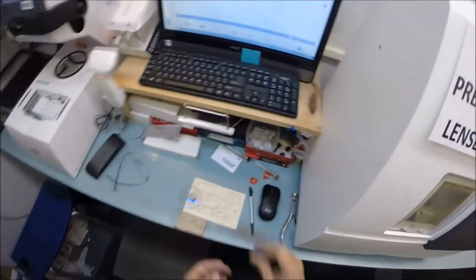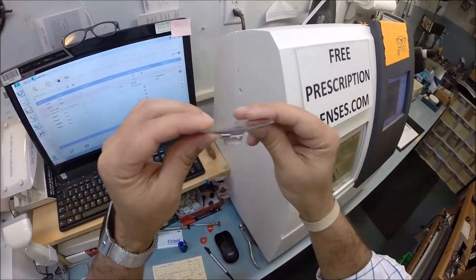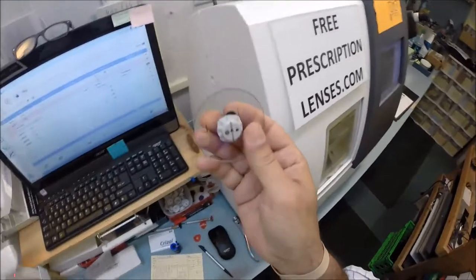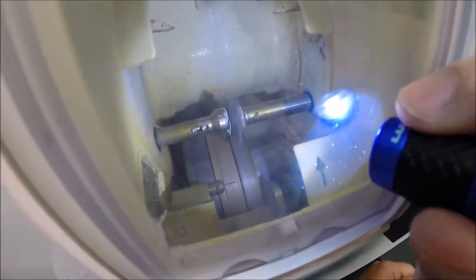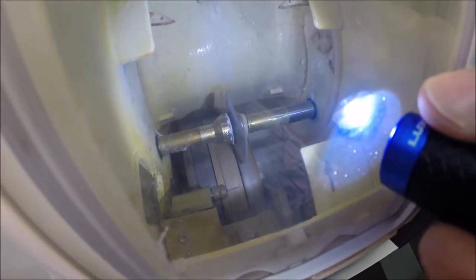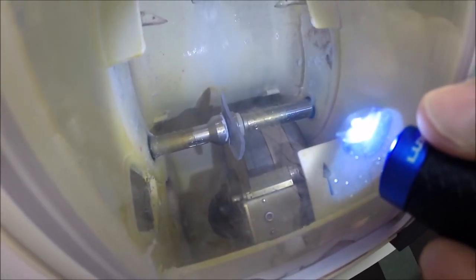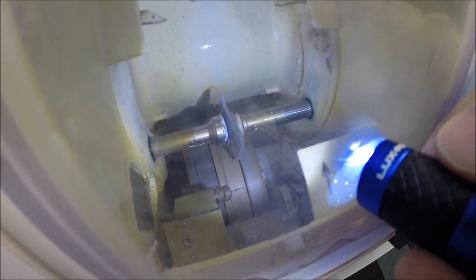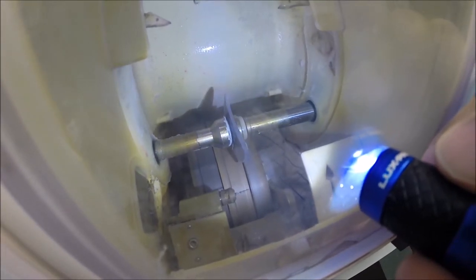My lenses are made out of polycarbonate. Polycarb is 40% thinner and lighter than regular plastic. They are virtually unbreakable, bulletproof up to .22 caliber, and have both UVA and UVB protection built into the lens. Your eyes are 8 times more sensitive than your skin, so you have permanent sunscreen for your eyes — unlike lotions, creams, and sprays that need to be reapplied every few hours. This is permanent and never needs to be reapplied.